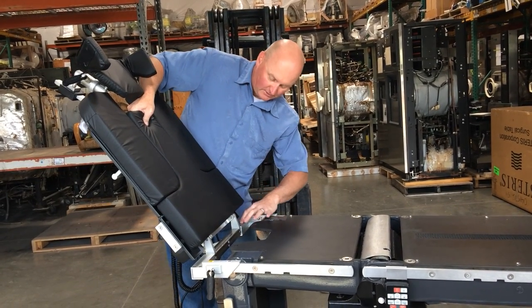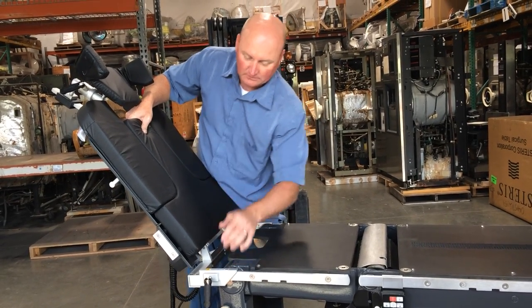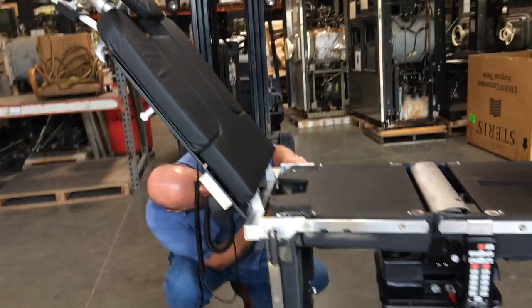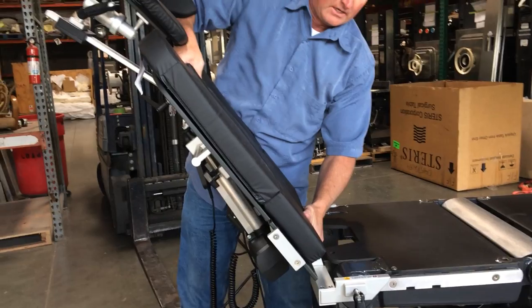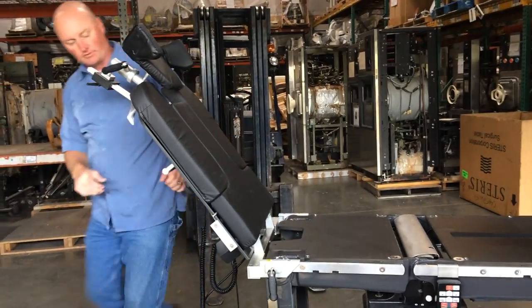Just so you know, these brackets here slide from side to side to adjust to the different widths of different side rails. There are detents on most tables that you might have to flip at the end — maybe for the Clark sockets and things you're probably familiar with.